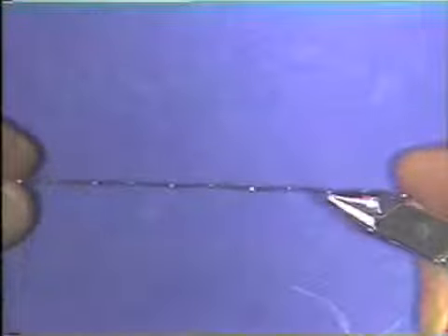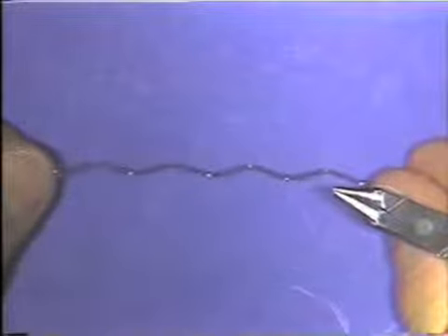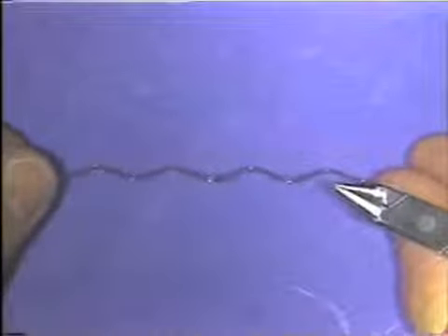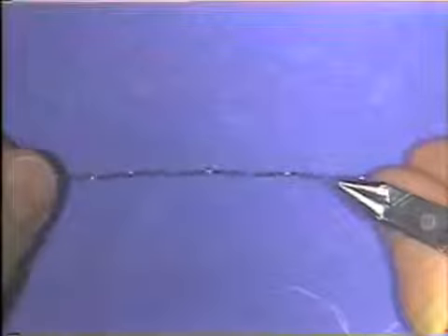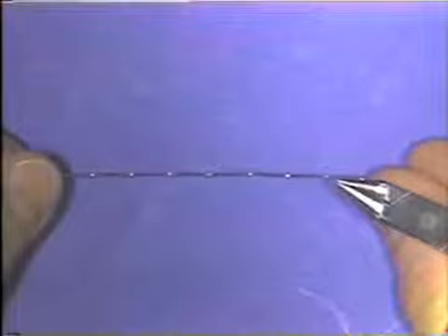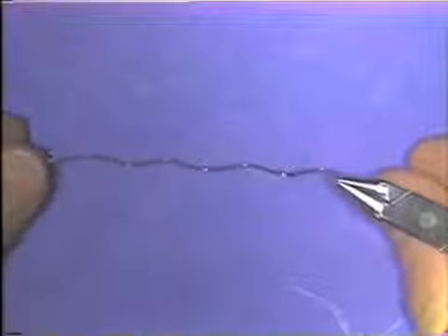Ideally, as you're bending a wire, the bends are made with control of the plane in space in mind, by keeping the wire at exactly 90 degrees to the long axis of the beaks of the plier as you're making each bend.